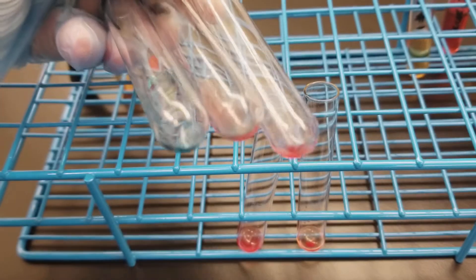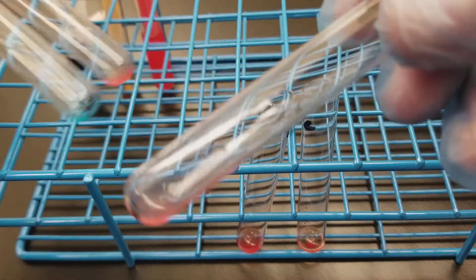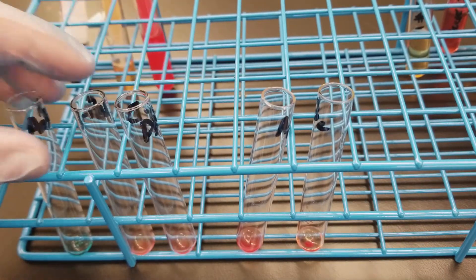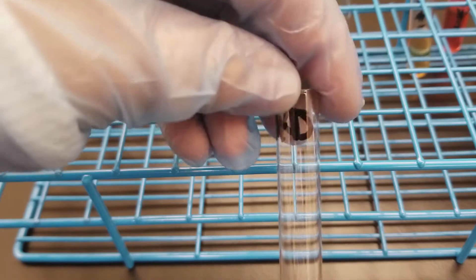This patient is A positive. You can see the agglutination in the A and there are agglutinations in the D — they're very small but you can see them right there. As we know when we talk about compatibility with blood, when you try to get a unit to transfuse a patient you want to first try to get the one closest to their blood type. So we would want to try to get an A positive unit, then an A negative unit, and if we can't find any of those we could get an O unit — either O positive or O negative, since this person has a positive D.